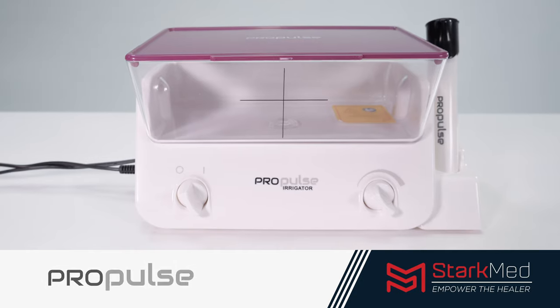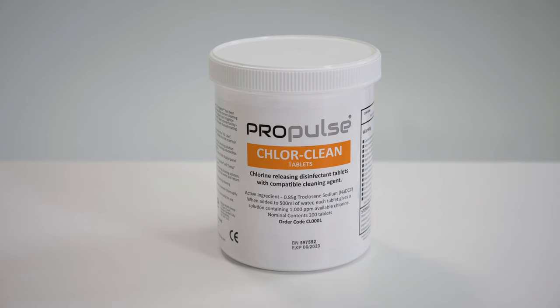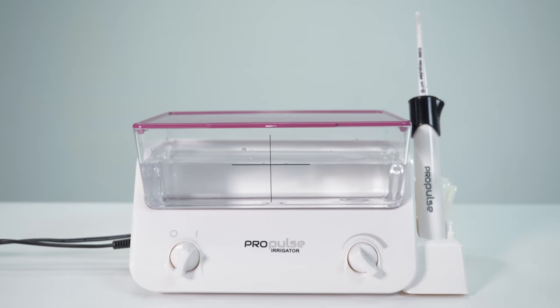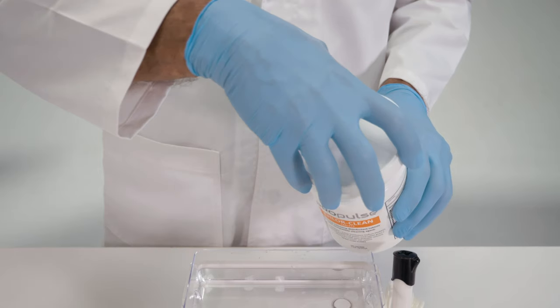Before first using the ProPulse ear irrigator, it must be decontaminated using ProPulse cleaning tablets according to the manufacturer's guidelines. This cleaning procedure must also be performed once daily before use.